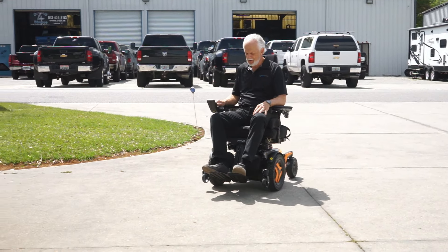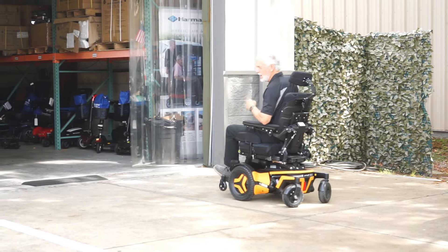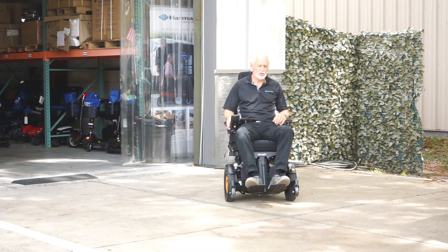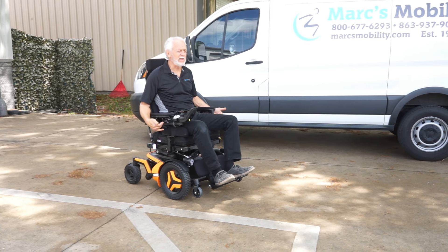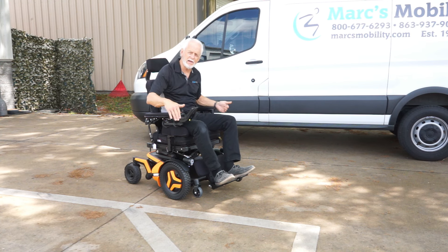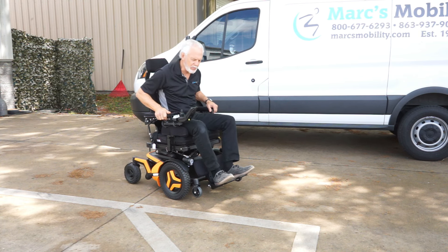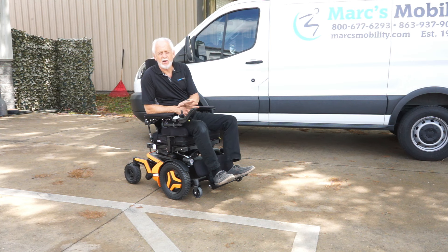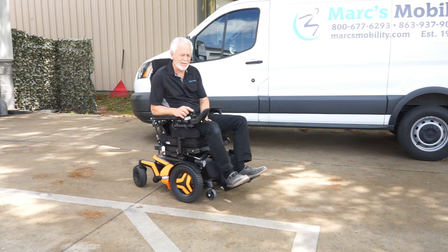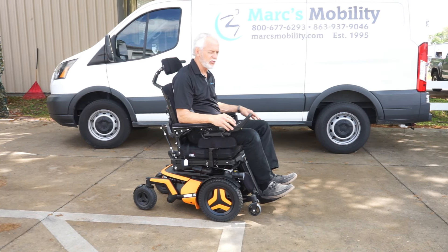It's going 7.4 miles per hour. Notice how well it stops too — it has built-in electromagnetic brakes on the motor. So if you let go going down a hill or up a hill, it'll stop exactly where you're at. Right now the power is on but it's in gear — it's not going anywhere until I push the joystick. If you just use the joystick as a gas pedal and move it a little bit, it barely moves, so you can control your speed that way.